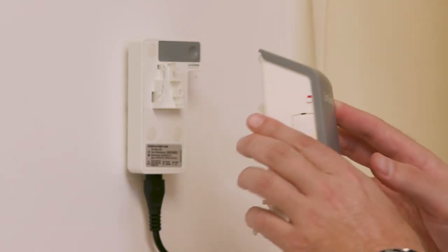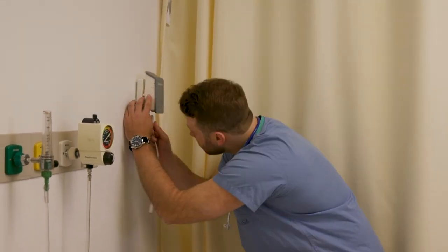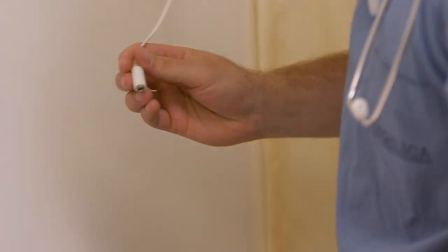To begin, make sure the InSight unit is connected to the cradle. Connect the sensor to the InSight unit. When connection is made properly, a click sound will be heard.